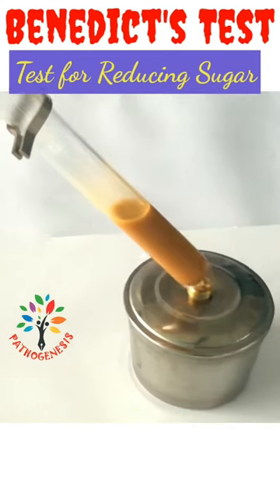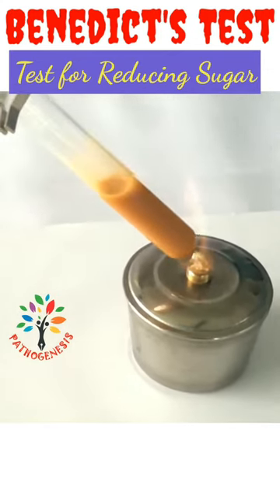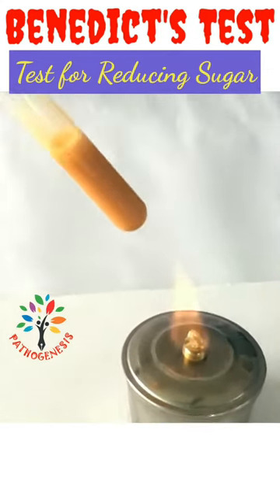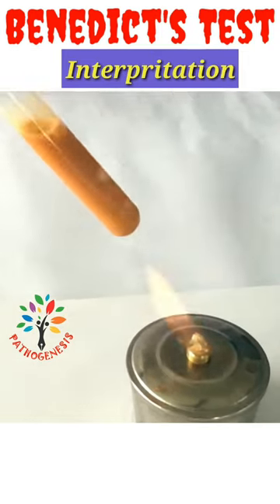Let it cool and observe the color change from blue to green, green to orange, orange to brick red precipitate.